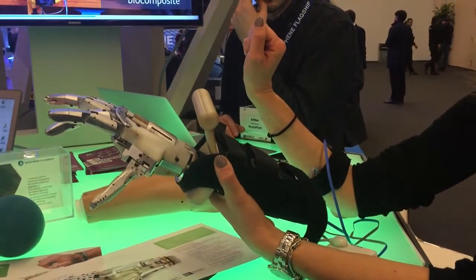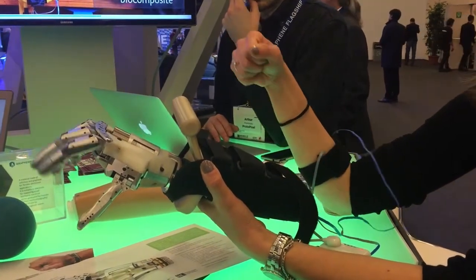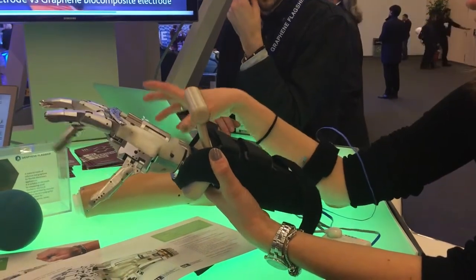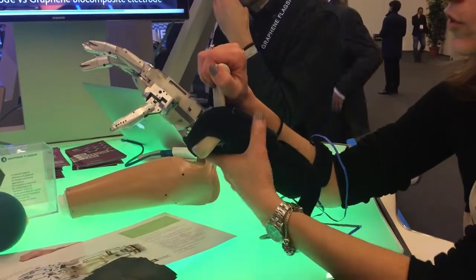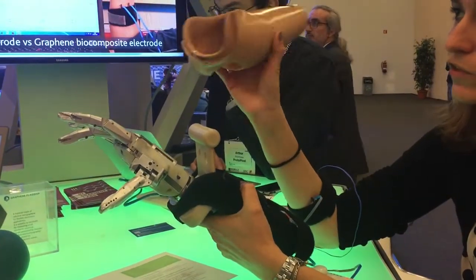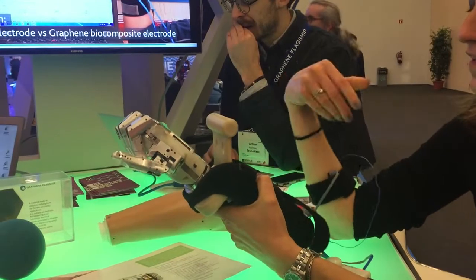Our dream is to replace the rigid electrodes in titanium and also all connection cables, and obtain a simple sensor which is wearable and conformable. You can imagine inserting it directly in the socket, avoiding all the extra hardware.